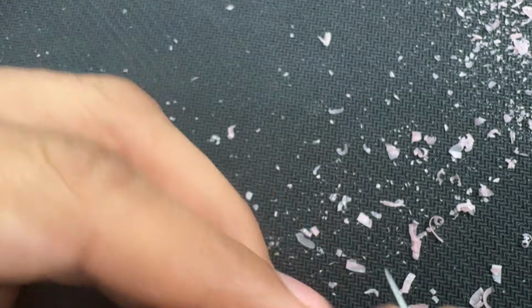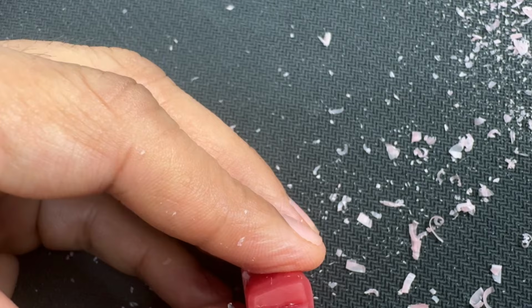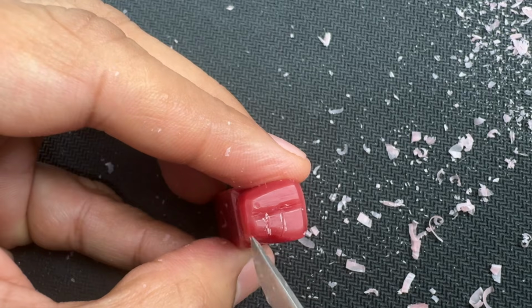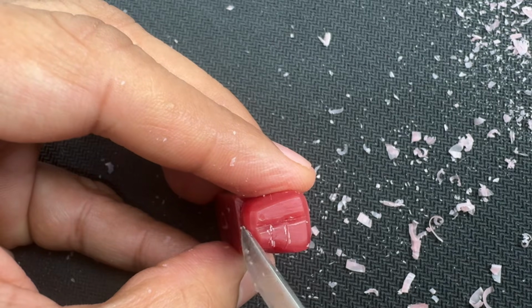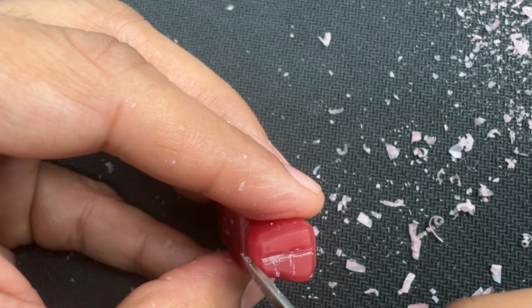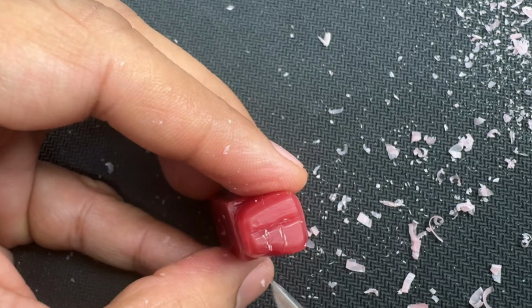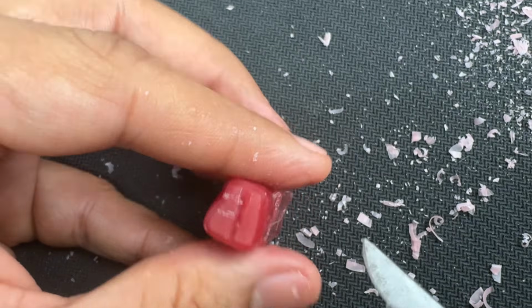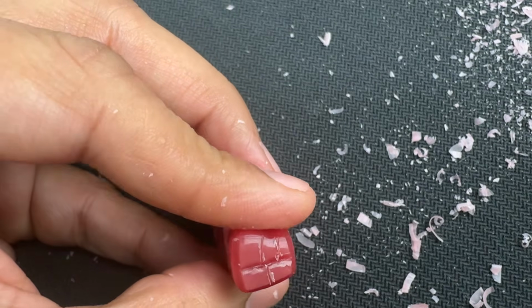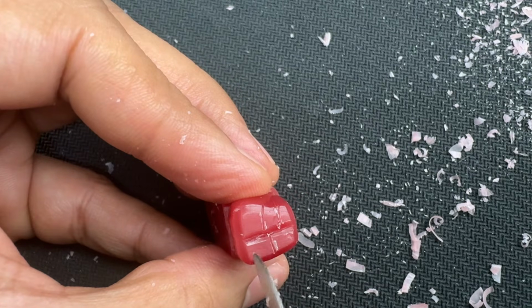Don't worry about the distal cusp. The distal cusp occupies a position such that it's a little bit on the distal side as well as the buccal side. So it's on the distobuccal surface, not entirely on the buccal surface. As the tooth goes towards the distal side, it occupies that position, not completely on the buccal surface, a little bit on the distal side. But if you look on the lingual side, we take half, because there are only two cusps. So we now have five cusps: 1, 2, 3, 4 and 5.